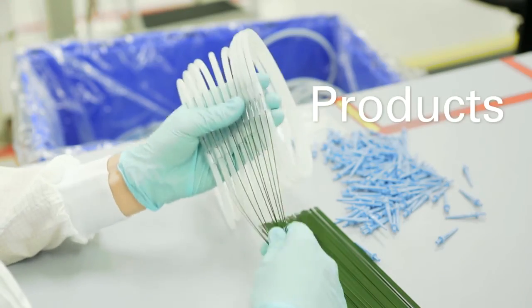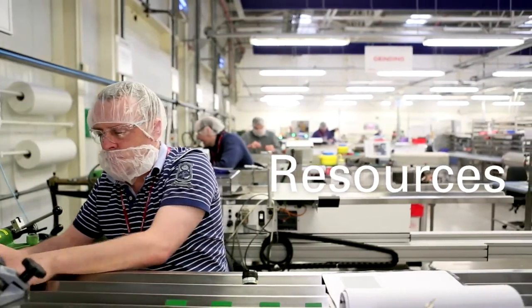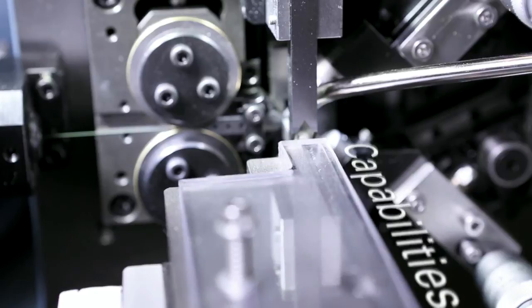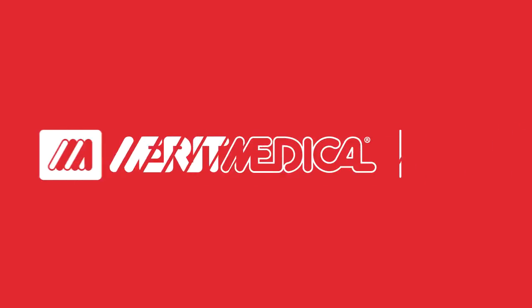Along with all of the other products, resources, and capabilities Merit Medical is known for. Learn more about Merit Medical custom-coated solutions today and find out how we can create new possibilities and exceed expectations on your next project.